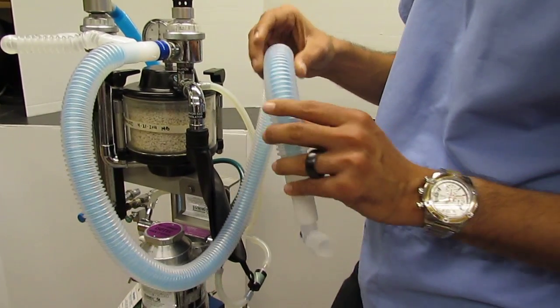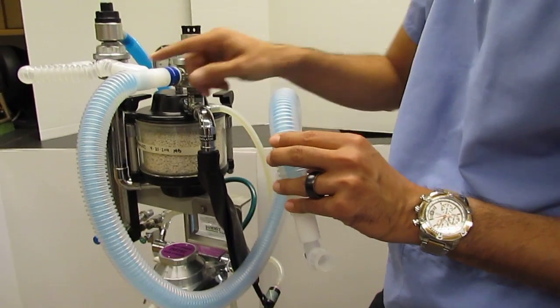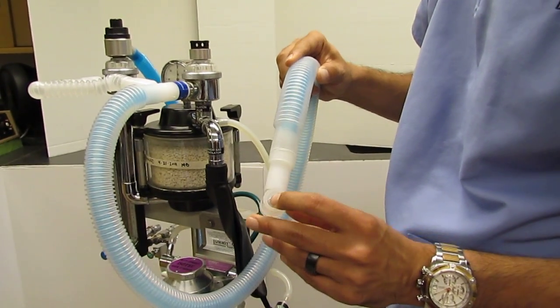It's called coaxial, because coaxial just means one tube inside of another. So, the inner tube, and then that's where the patient breathes.